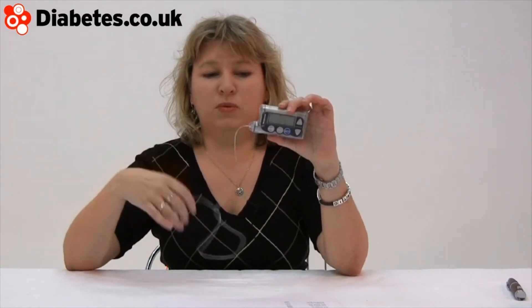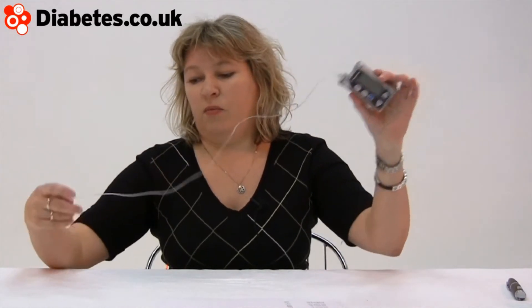And that very slowly pushes wiggly bits of insulin out. Then when you have food — if I had sandwiches at lunchtime, I'd probably need about four units of insulin. So I'd program in four units, and it would deliver it through this, which is attached to another little cannula that drops the insulin into my body. You just use the one insulin, and it keeps you going.